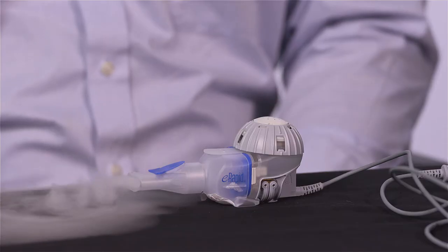The eTrack nebulizer should not interfere with how you take your medicine, but at any time you can stop using the nebulizer completely or only for some medicine.